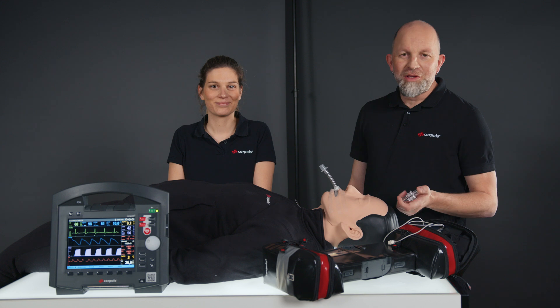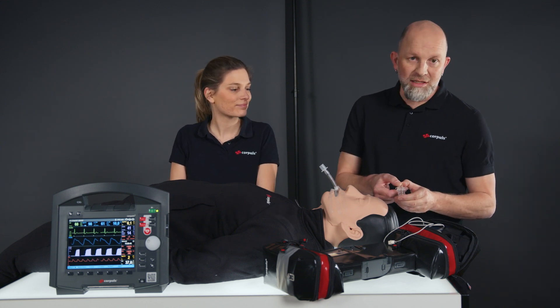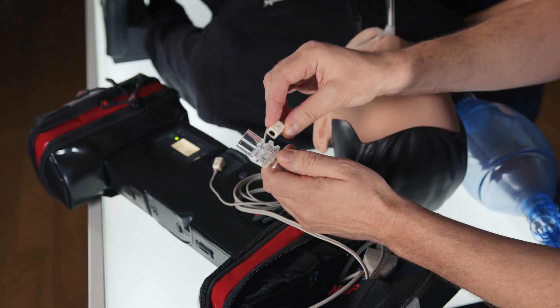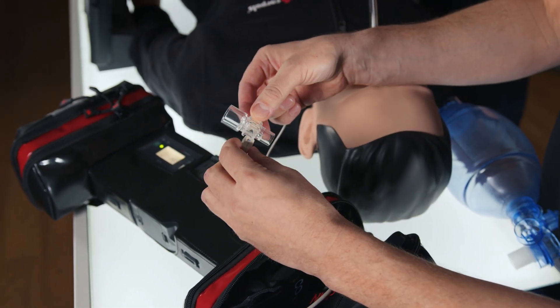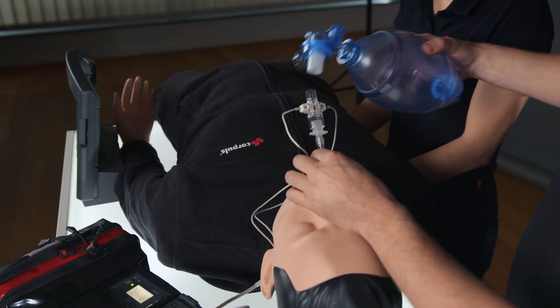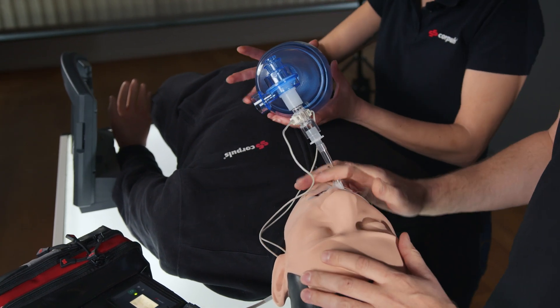For intubated patients, you use the tube adapter. It is prepared like the nasal adapter, triangle to triangle. It is then placed into the airway. Please let us know in the comments where you place the CO2 measurement.